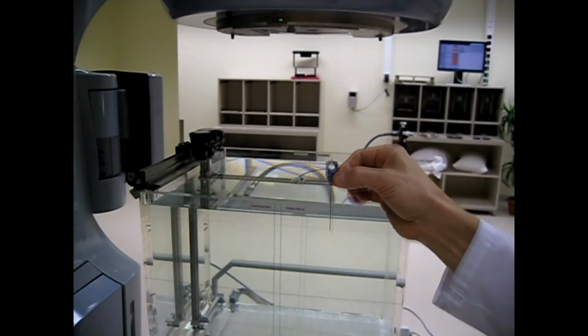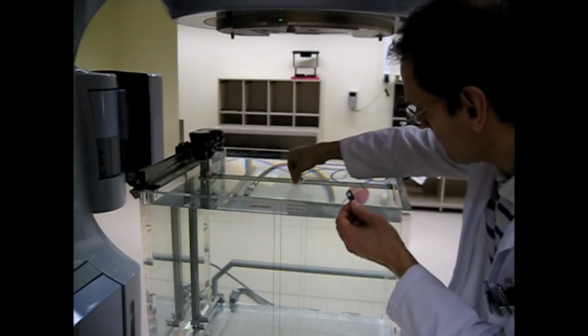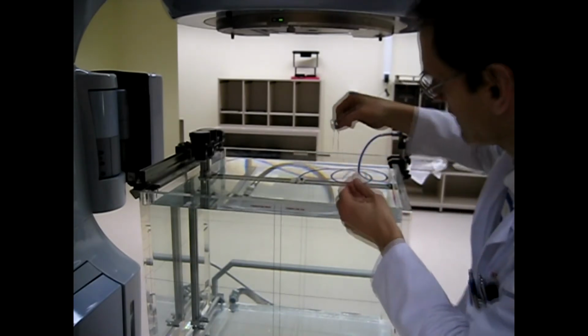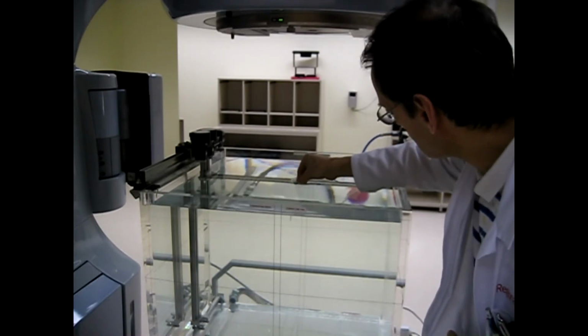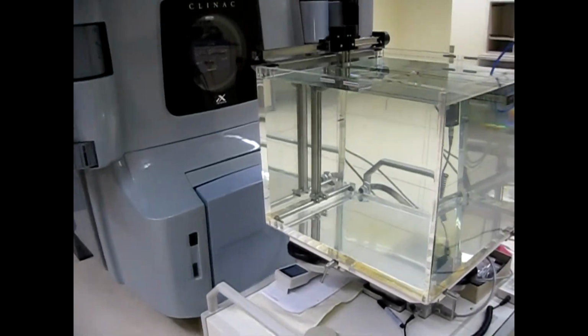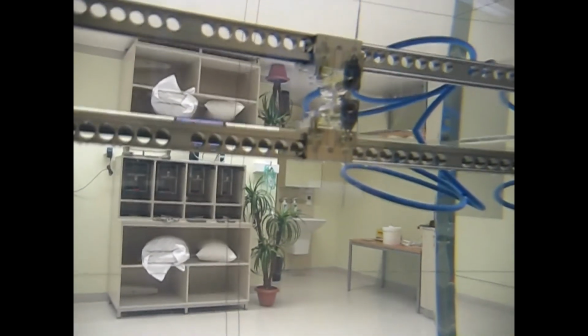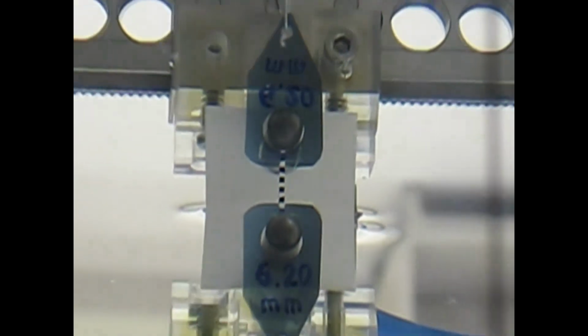Now we need to put the measuring device on the ionization chamber. First of all, we place a piece of white plastic or paper strip to create a white background to better see the small scale tip of this device, and then we can put the MT device itself. After a short waiting time needed to stop waves on the water surface, we move the ionization chamber to the so-called calibration position, when the line of the MT device with its reflection is equidistant. It means you see the distance between the black marks is equal.